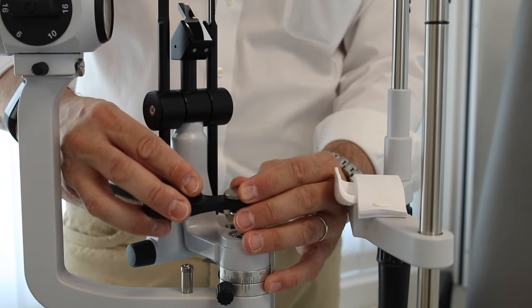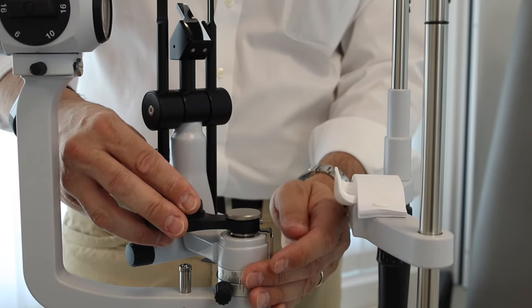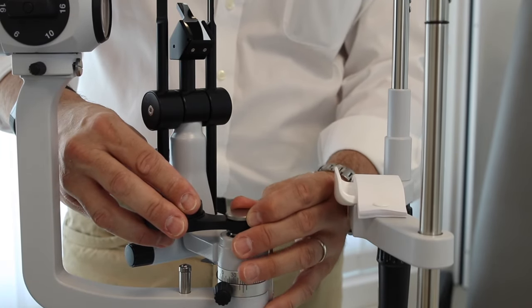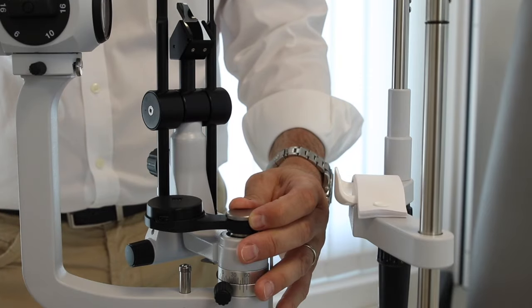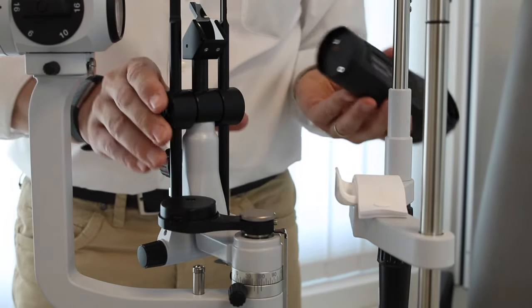So you insert the adapter, make sure that it's in the right position, it does not move, secure it, and then you will see that the strong magnets on the base of the CI device is all you need to keep it in place.